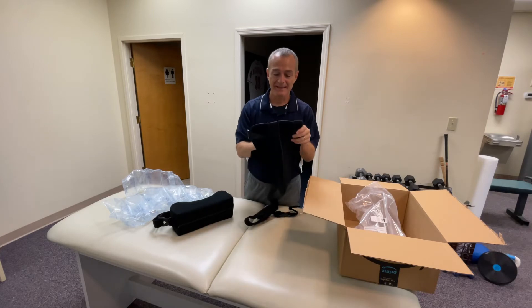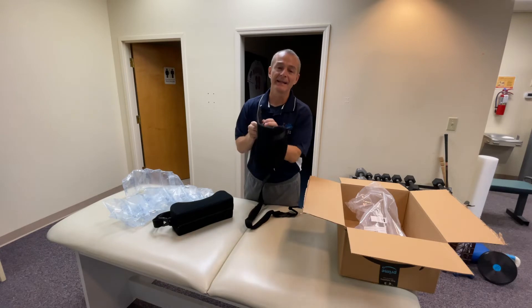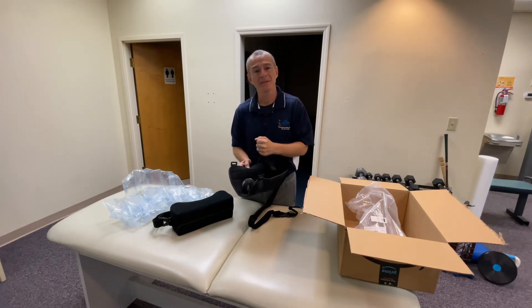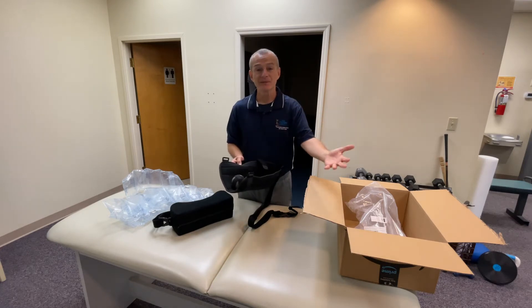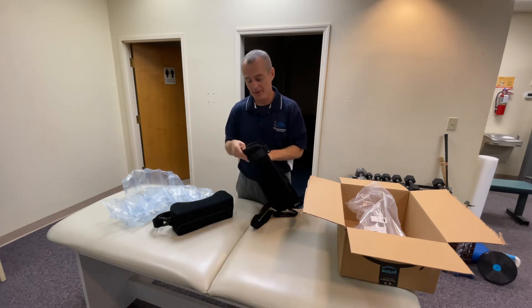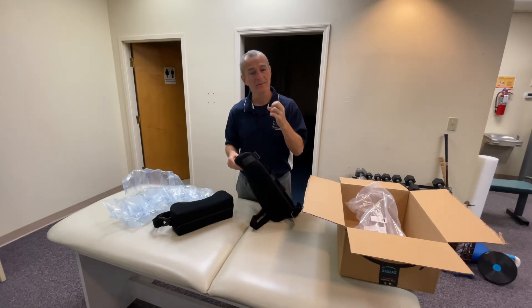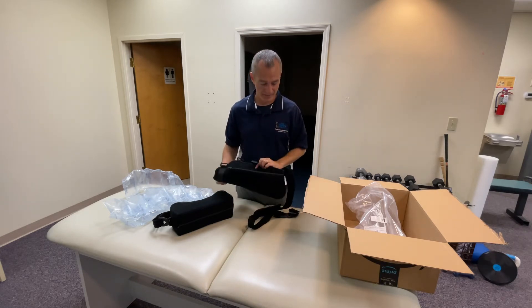You can see inside there's a ball — this is a squeeze ball. The purpose of that is when your arm is in the sling in a down dependent position for a prolonged period of time — several days, weeks, over a month — you're going to start getting a lot of swelling and tightness through the fingers. The idea behind the squeeze ball is that you can start to exercise the grip to pump some of the fluid back out into the system so that we can get the lymphatic drainage working a little bit better.